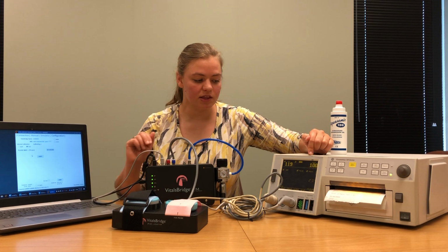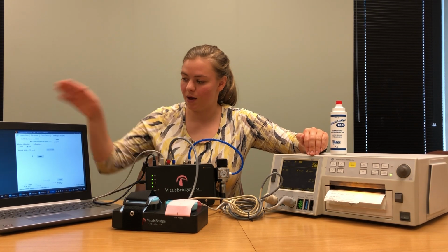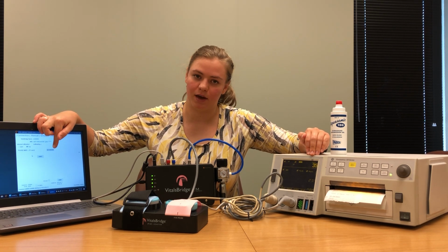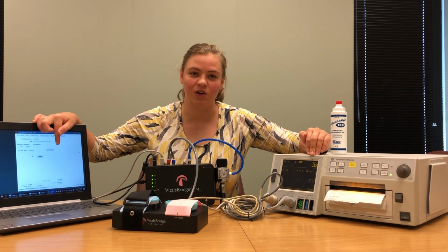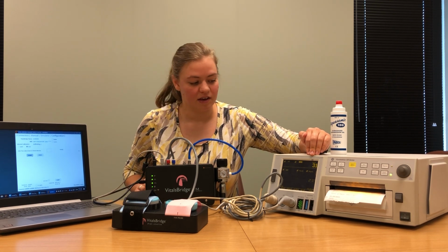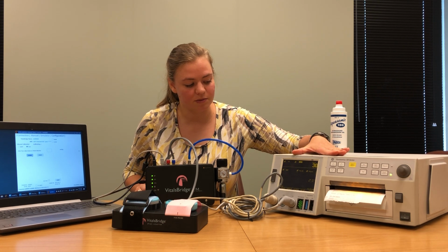And if you see the TOCO value level out before the box has appeared on screen, you can skip the countdown by pressing this button. Though I recommend making absolutely certain that you know your TOCO value has leveled out so that you can get a good calibration. For this last level, we'll wait for just a minute for it to level out.